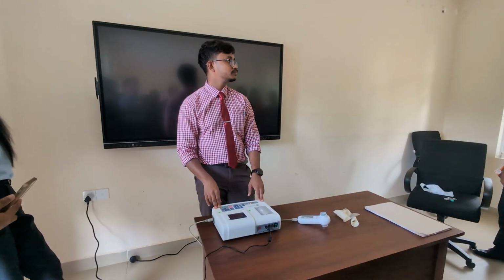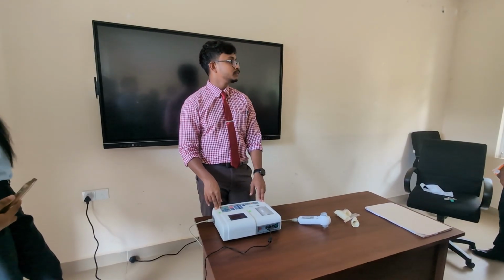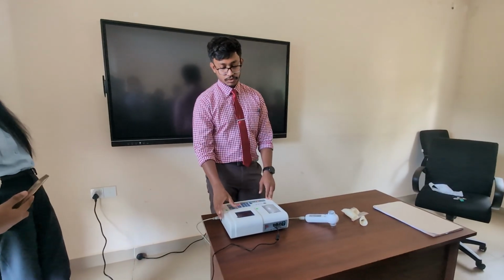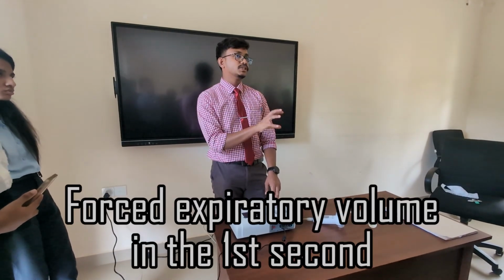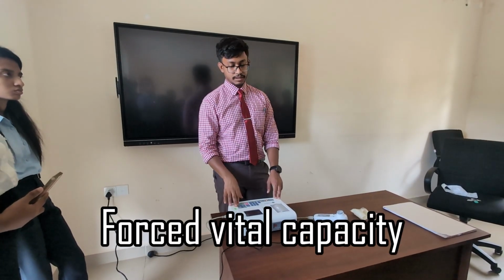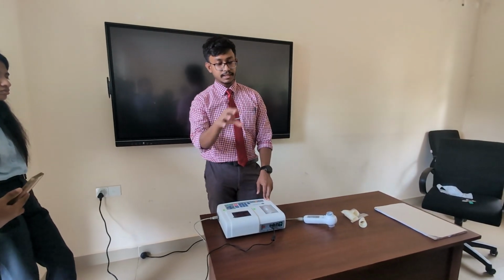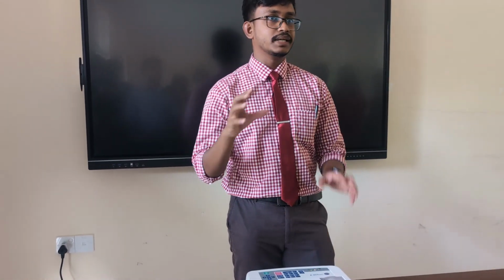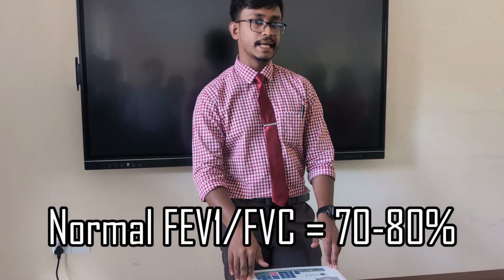Because we can calculate the FEV₁ to FVC ratio and from that, yeah. So this machine can also calculate the forced expiratory volume in the first second and the forced vital capacity as well. So with that we can get the FEV₁ over FVC ratio, and with that we can diagnose whether this disease is a restrictive or an obstructive disease.